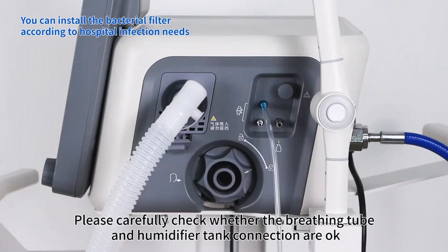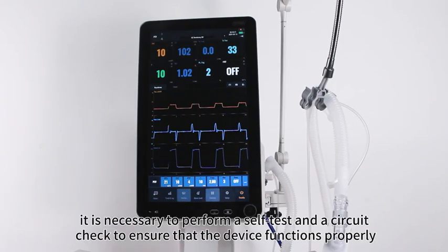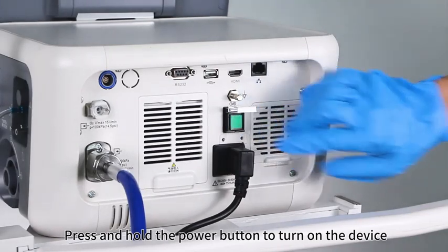Please carefully check whether the breathing tube and humidifier tank connection are okay. Turn on the device. Before applying the device to the patient, it is necessary to perform a self-test and a circuit check to ensure that the device functions properly.